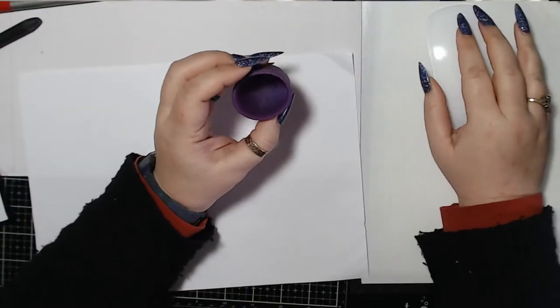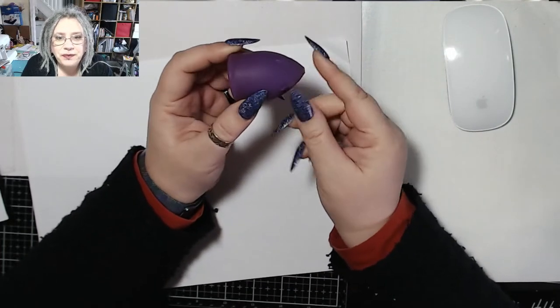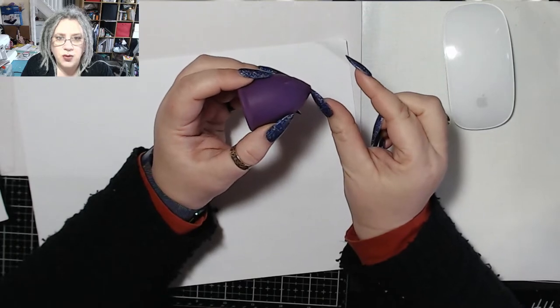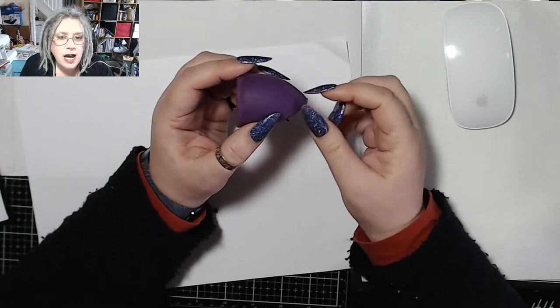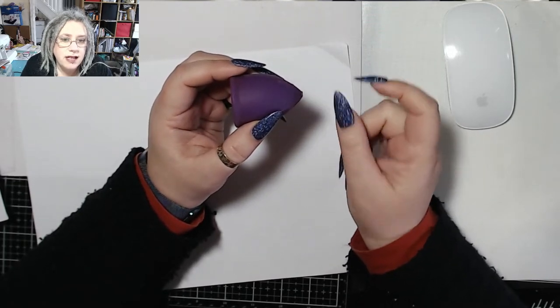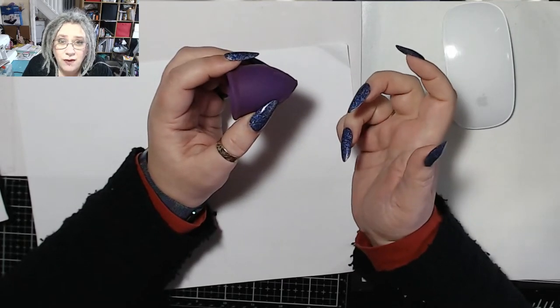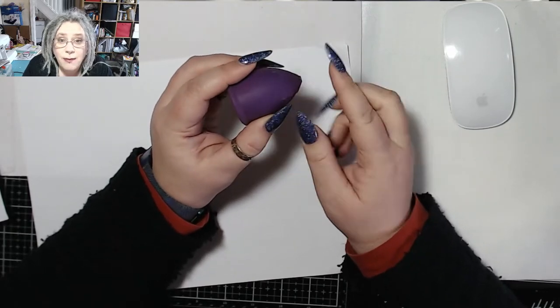I'm going to turn my camera on so that you can see my hands as well. This is my menstrual cup. Nine times out of ten, cups come with a stem — normally just like a twiggy type thing at the bottom. It might have a little ball on it to aid you getting hold of it. The Merula comes with what looks like a little ladder. Now I cut my stems off because even though I have quite a high cervix, the stem digs into the walls of my vagina and it's actually quite uncomfortable. It's easy — literally just get a pair of scissors and cut it off. Make sure you don't go through the cup though.